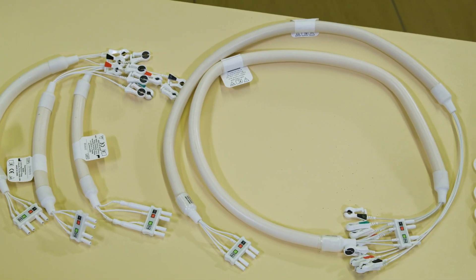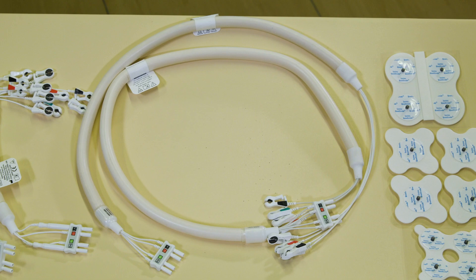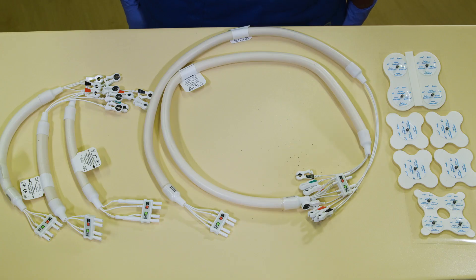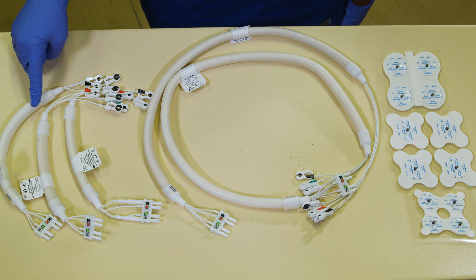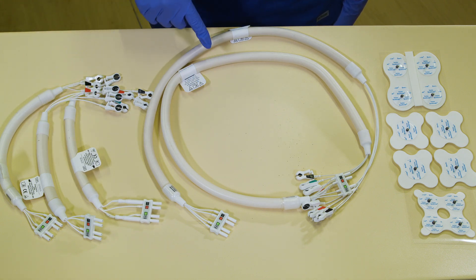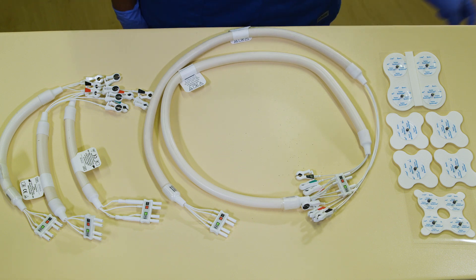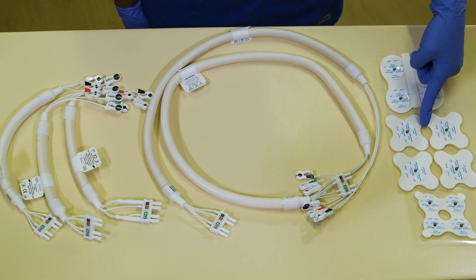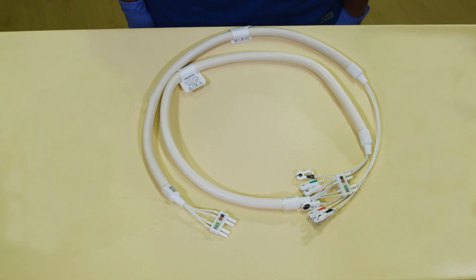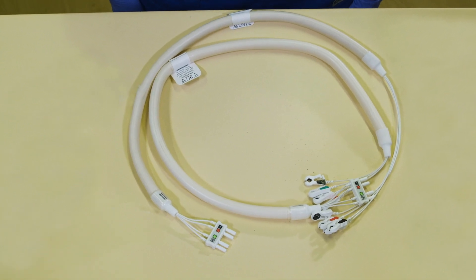Before placing ECG leads on the patient, you want to make sure you pick the correct quatrode with the correct ECG cable. There are five types of ECG cables: standard, CV, neonatal, advanced filter, and advanced apps. These pair with three different quatrodes: standard, CV, or neonatal. For this training, we will focus on the two most versatile and commonly used cables.